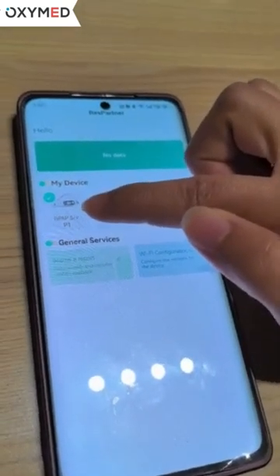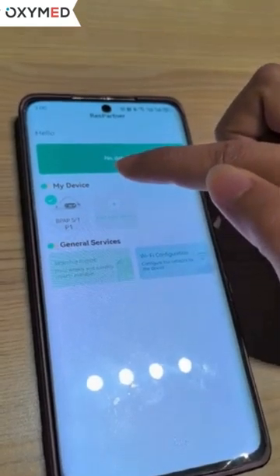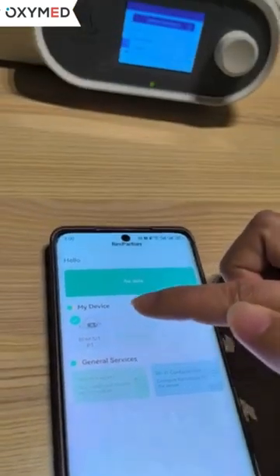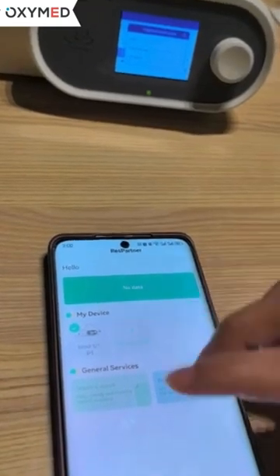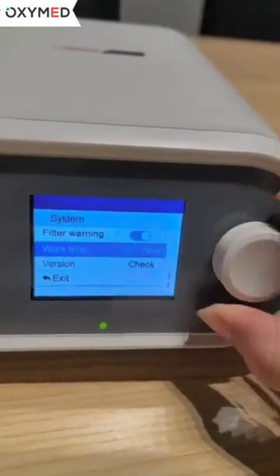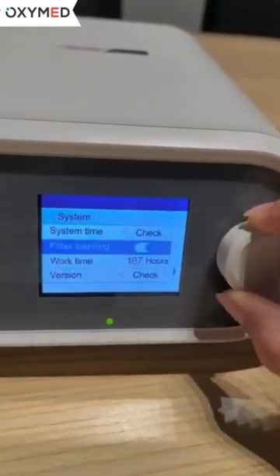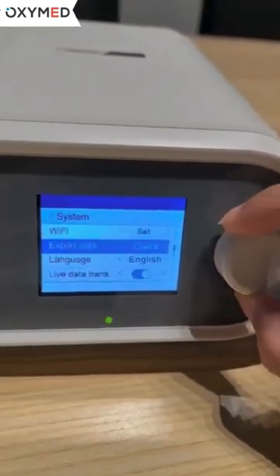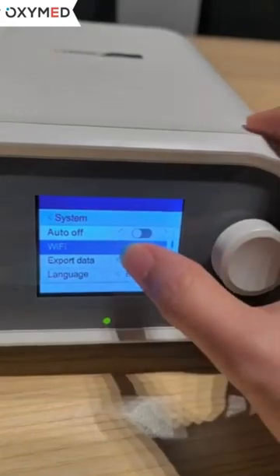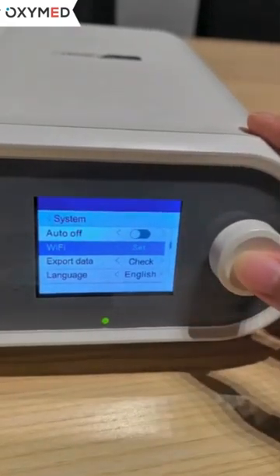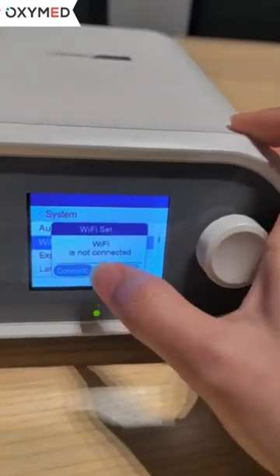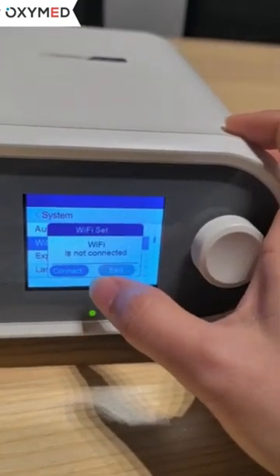After clicking confirm, the app will show 'Device Bounded', meaning we have successfully bound the device with the Wi-Fi app. Next, we need to connect the Wi-Fi by entering the device system and rotating the control button cursor to 'Wi-Fi Set'.